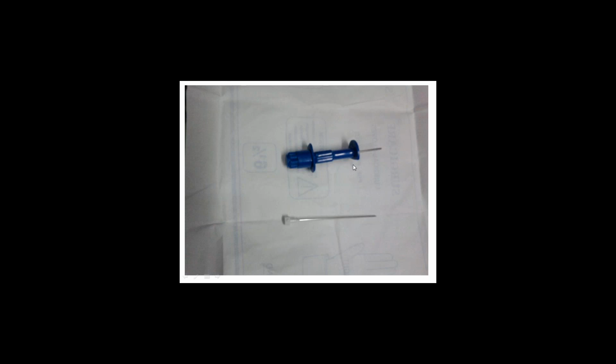The guard was very important during the days when the most common site for bone marrow was the sternum, because it helped us a lot. I also learned doing bone marrow right from the sternum, and it's pretty easy to get from there. But now the sternum is not the preferred site. We use the posterior superior iliac spine as the most common site, since it is easier to do, safer, and if we need a biopsy it can be taken in the same sitting.